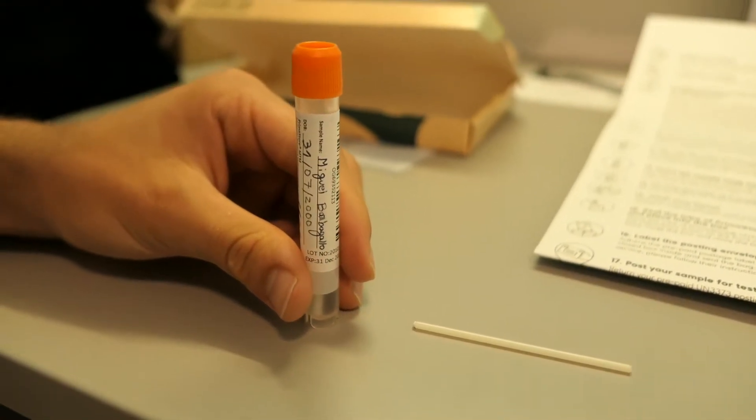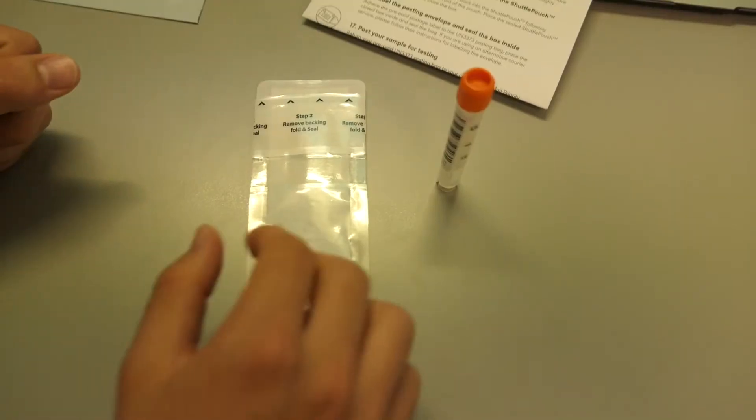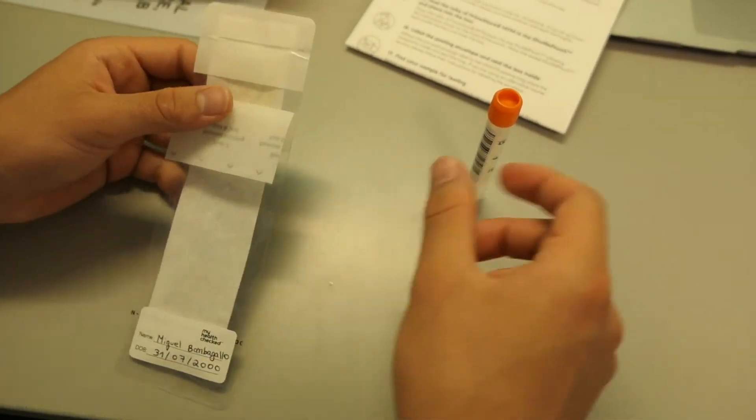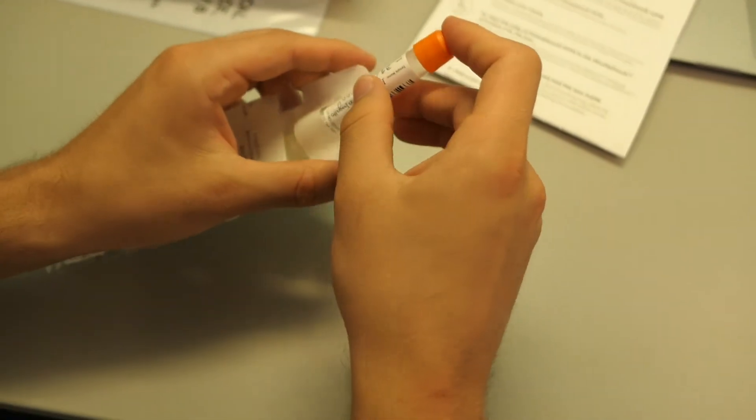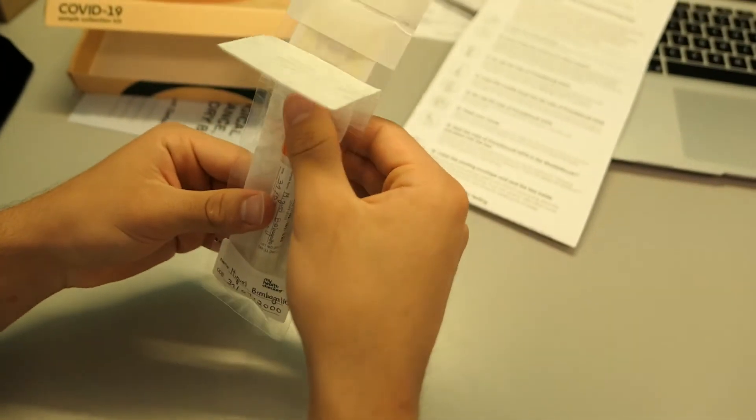Recap the tube and gently invert it for 3 to 5 seconds. Wash your hands with soap and warm water for 20 seconds again and place the tube into the shuttle pouch, following the instructions shown on the front of the pouch.